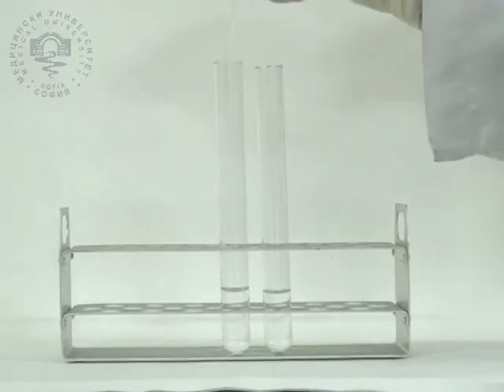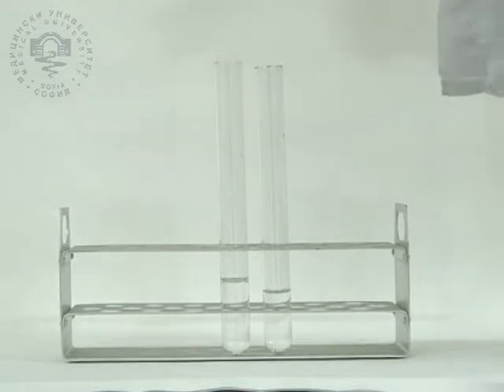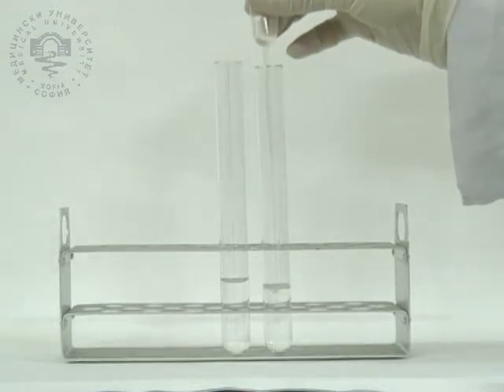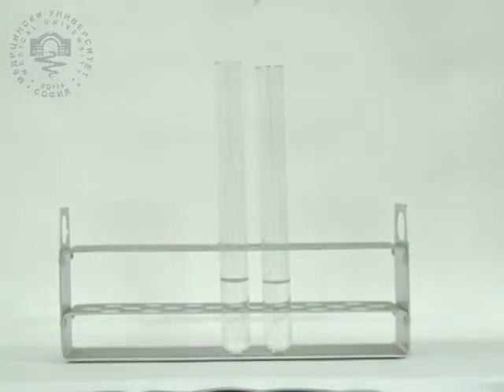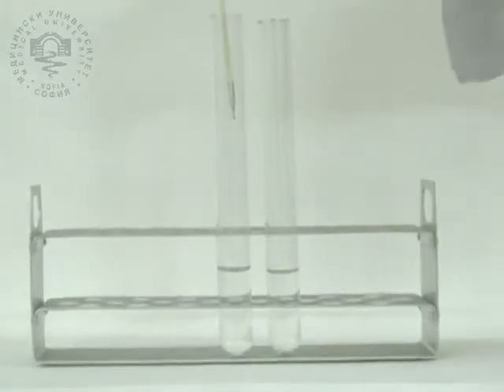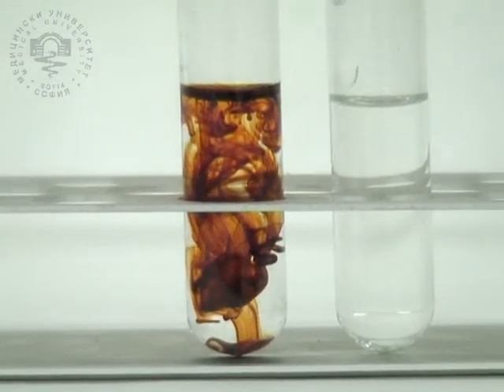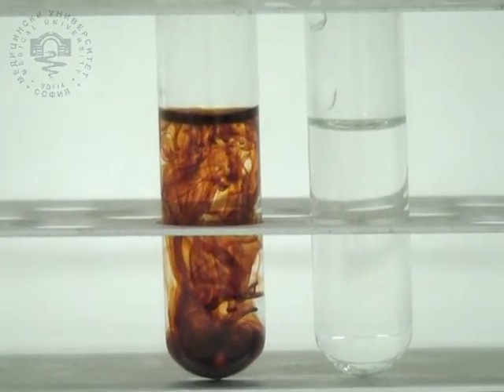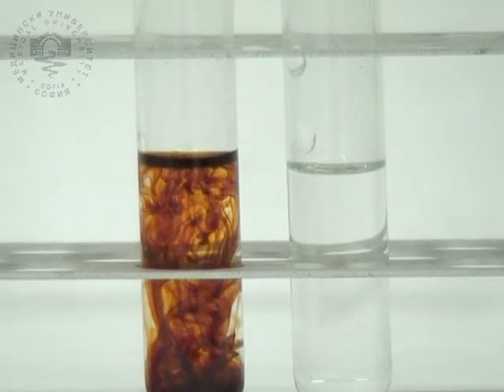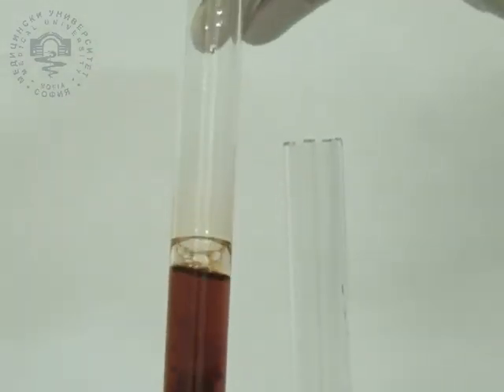1-naphthol phosphate is added to blood serum stabilized by addition of acetate buffer. If the sample contains acid phosphatase, it catalyzes the hydrolysis of 1-naphthol phosphate to 1-naphthol. Then the diazo compound is added, it reacts with the 1-naphthol, and a red azo dye is produced. The increase of absorbance at 405 nanometers is proportional to the total acid phosphatase activity in the sample.